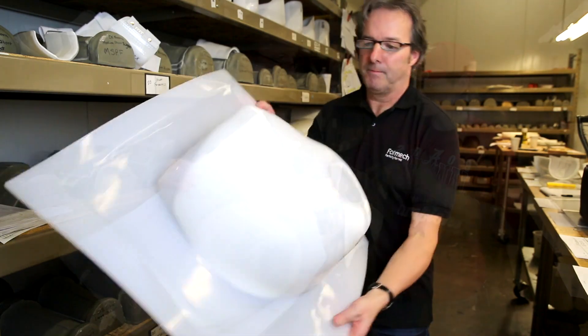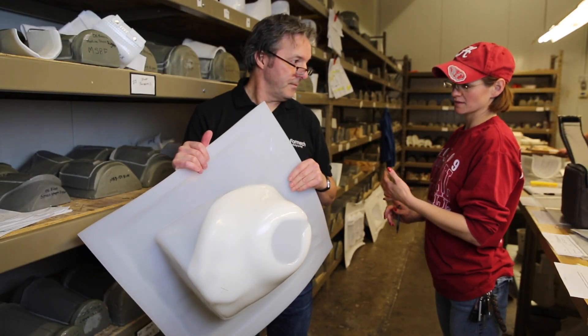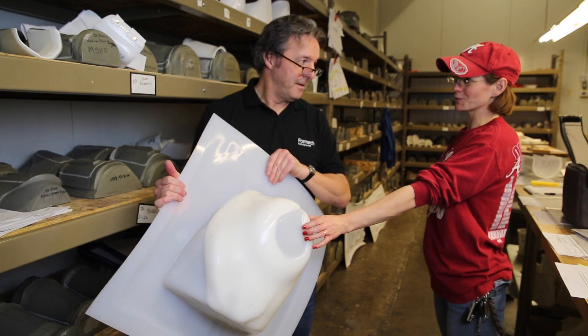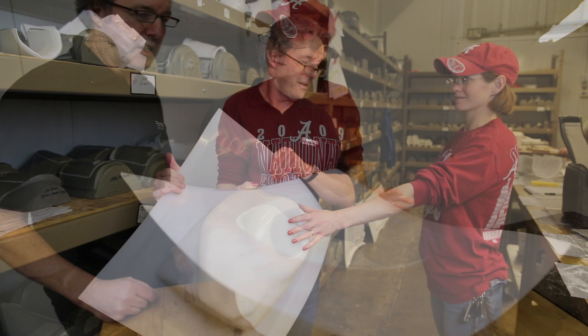It's kind of an interesting one. This whole device includes a shoulder device, a bicep device, and a pelvic device all on this. So this and other multiple cuff devices are going to go with it.